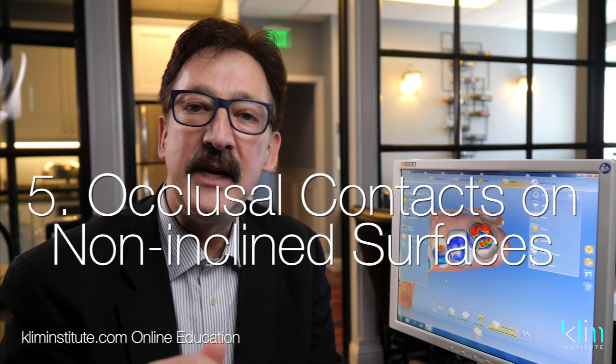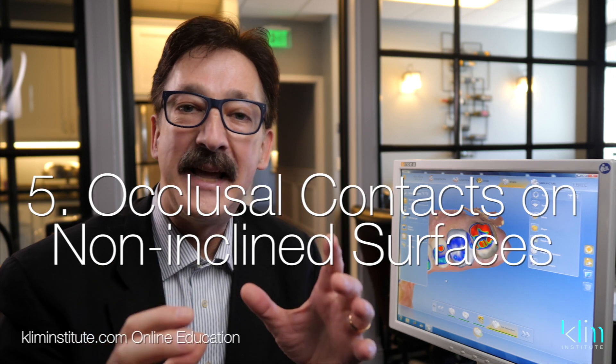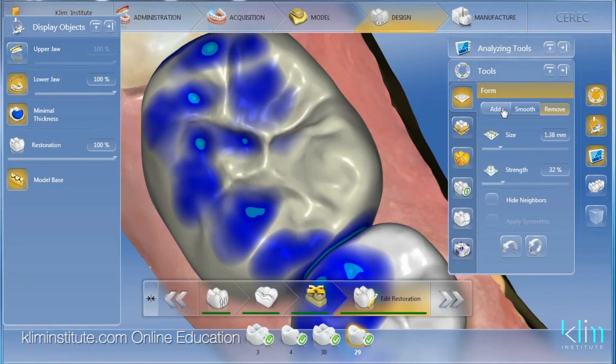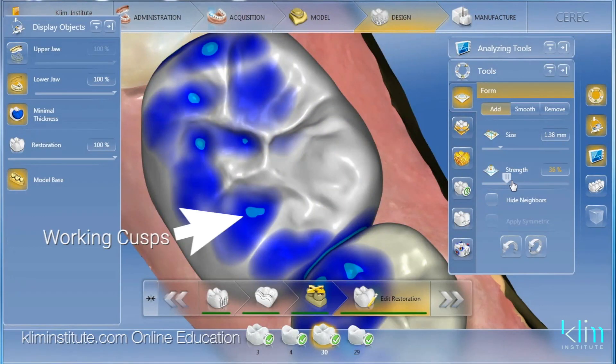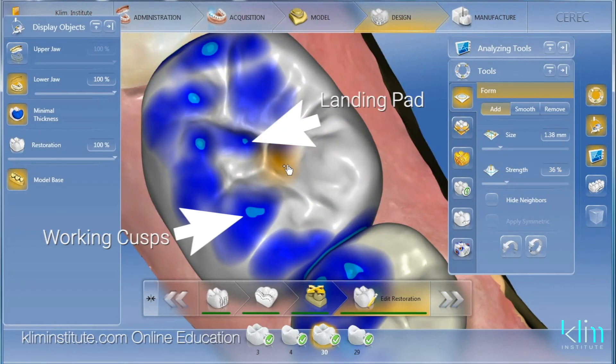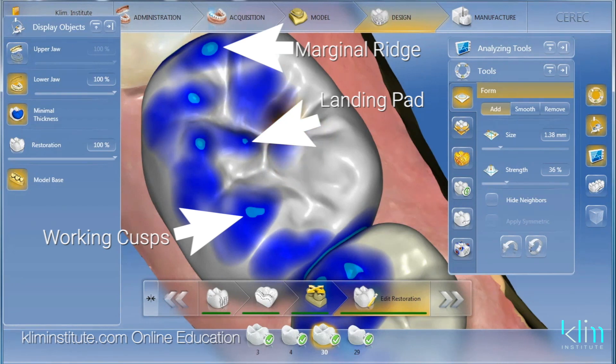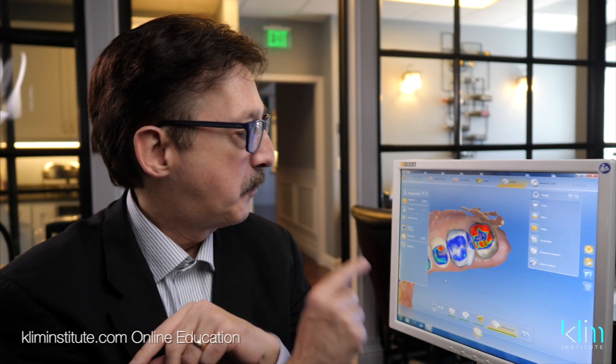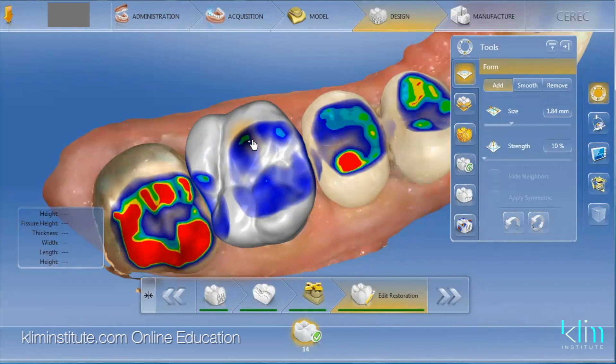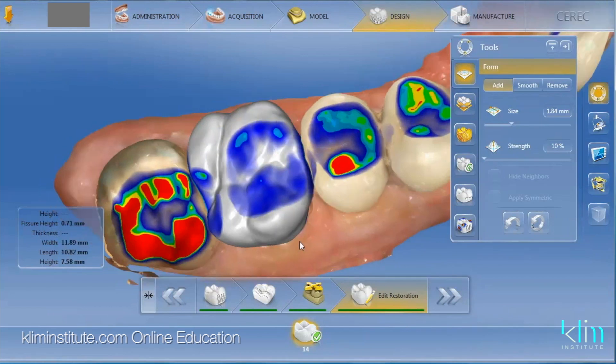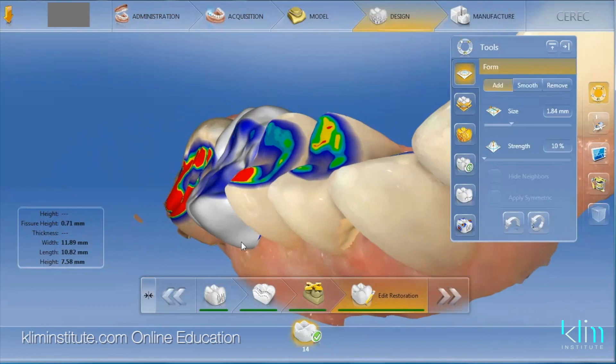Here's the final principle for nailing that occlusion. When you're designing your occlusal contacts, I recommend that you actually design them so you can see them — that's why these two parameters work together this way. My occlusal contact points, which would be virtual articulating paper, are aqua in color. I'm going to have them on working cusp, landing pads, and marginal ridges. In this case, they're primarily on a marginal ridge and working cusp because she's at class three, so we used canine-guided occlusion.